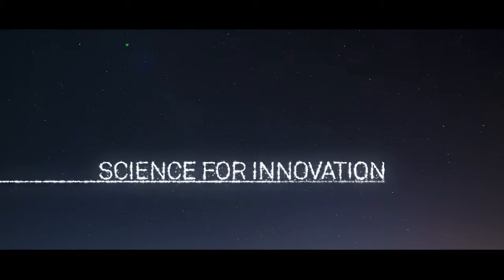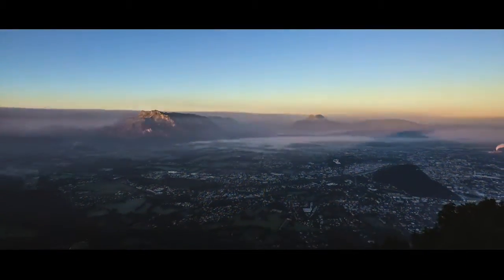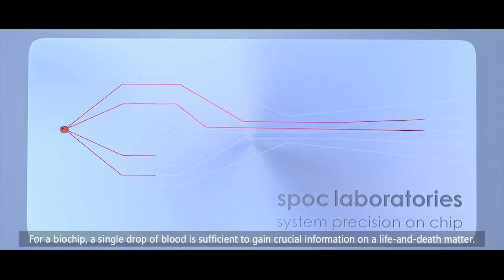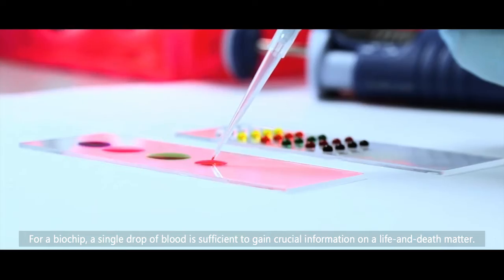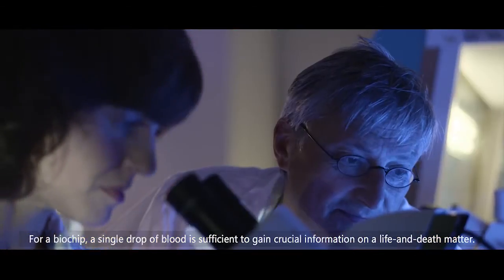Science for innovation. For a biochip, a single drop of blood is sufficient to gain crucial information on a life and death matter.